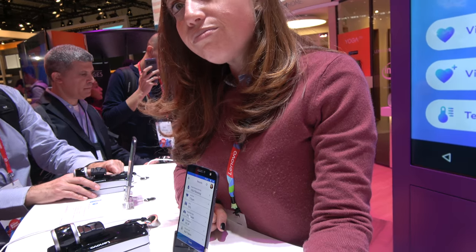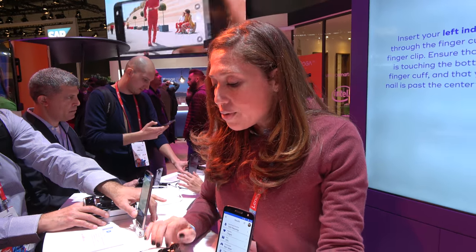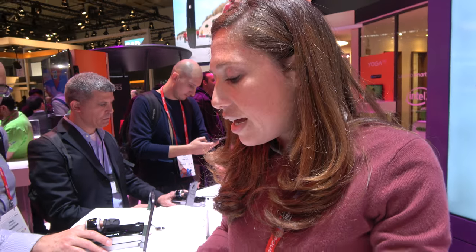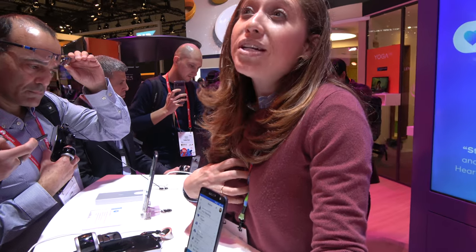How soon is this available and how much will it cost? We're looking to bring it to market in July for the first release. You can't hold me to it on the price, but I'm thinking around $300, give or take. So it should be affordable — it's kind of like a little hospital on the go. That's exactly how we see it: a triage unit for your home so that you can manage and monitor your own health.